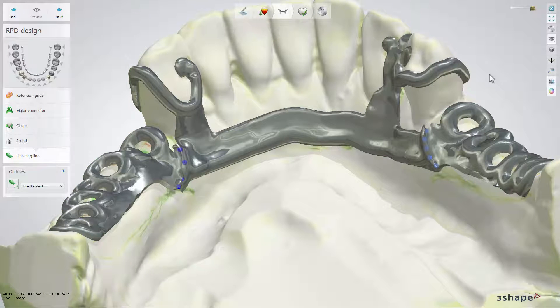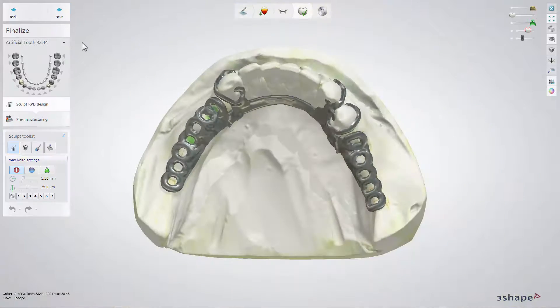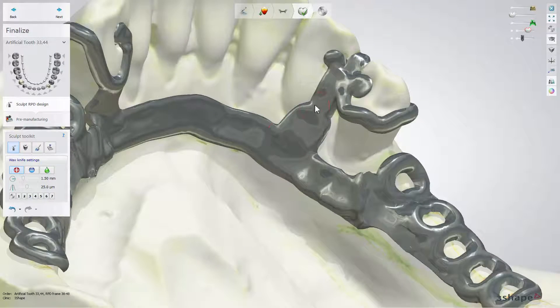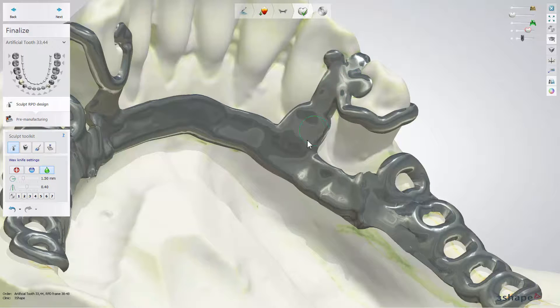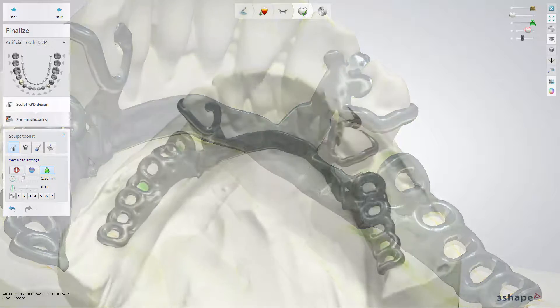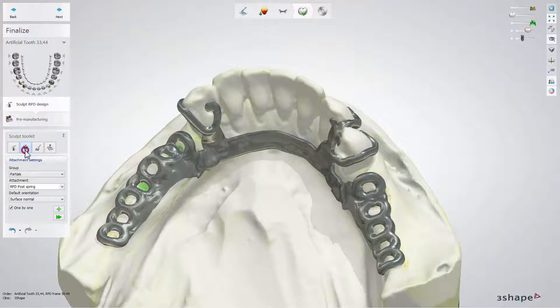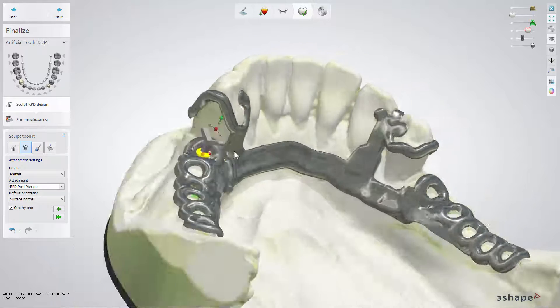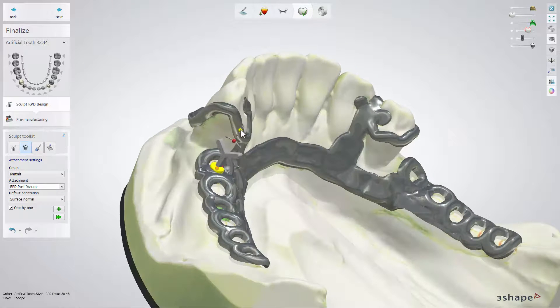To perform the final editing, click Next and proceed to the finalized step. Use the wax knife tool to shape your RPD and improve its visual appearance and make it stronger. If needed, add attachments by selecting RPD from the attachment settings — for example, for retaining posts or holes for the acrylic flow.